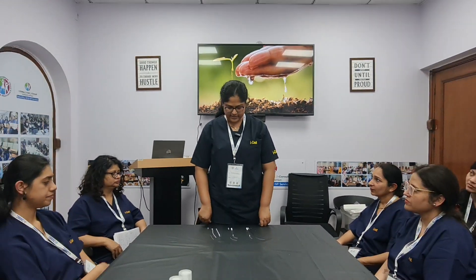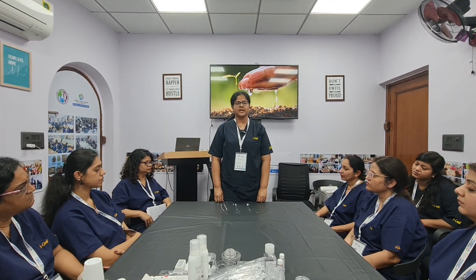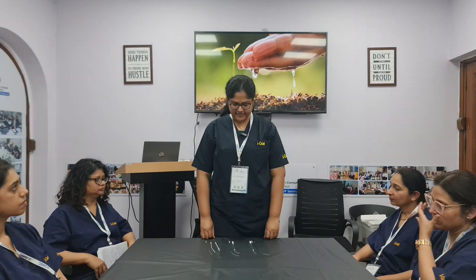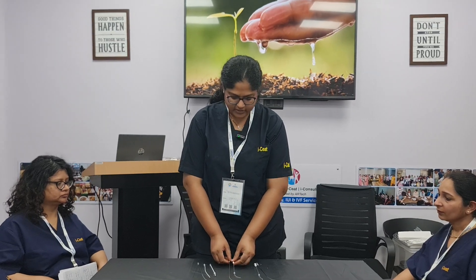Hello, I'm Dr. Poorvi Agrawal Goyal from Raipur, Chhattisgarh. I have come for the two-day hands-on training of C3 batch at Dr. Pankaj Talwa's ICET Academy. I'll be talking about the types of ET catheters — embryo transfer catheters.